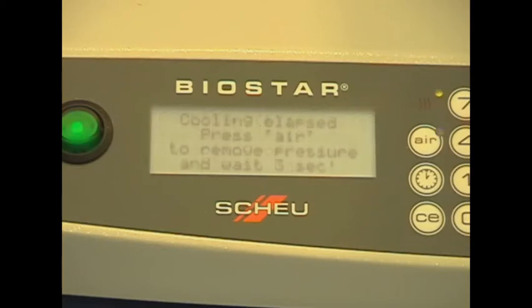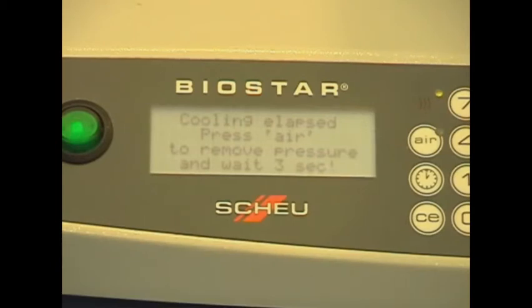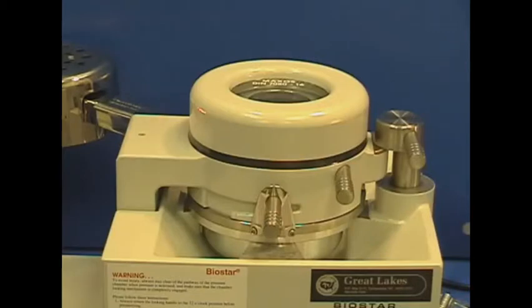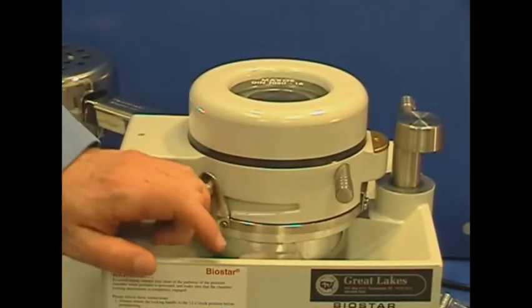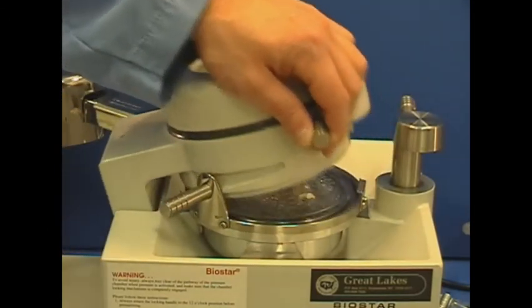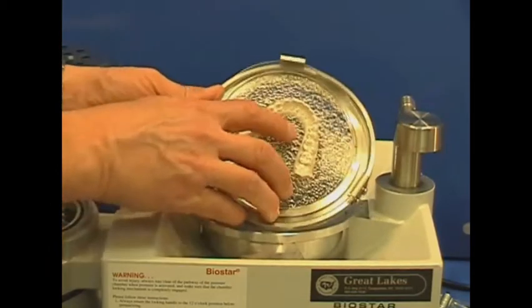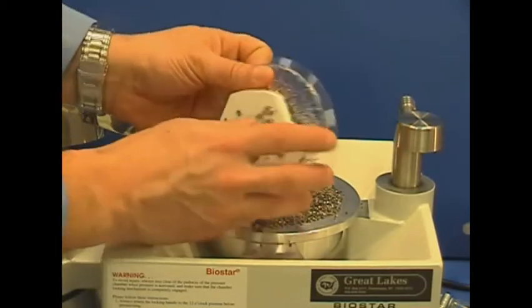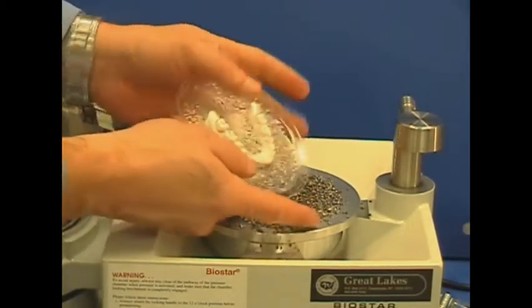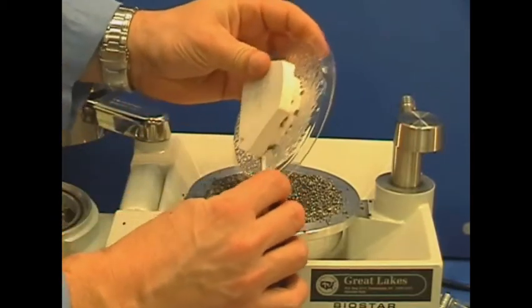At the end of this cycle, evacuate the pressure from the machine. Unlock the chamber and clamped material. Swing open the chamber and remove the formed material and model from the pellet cup. Some pellets may stick to the material — scrape them back into the pellet cup with a lab knife.